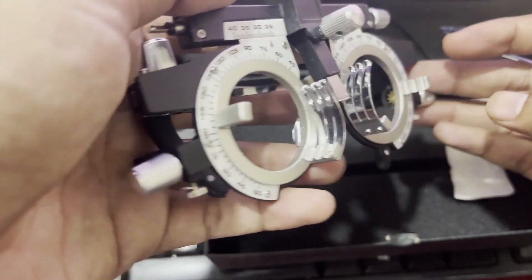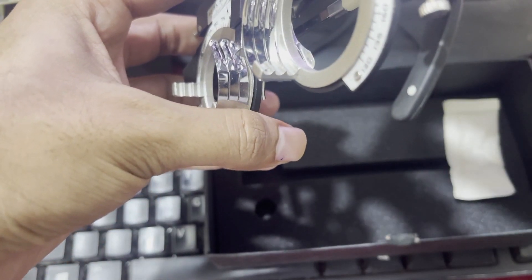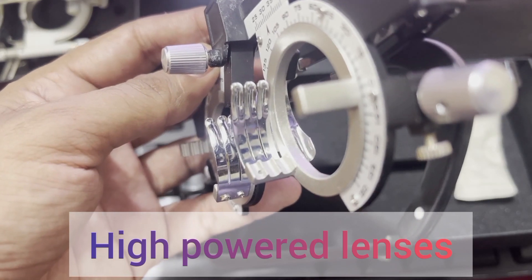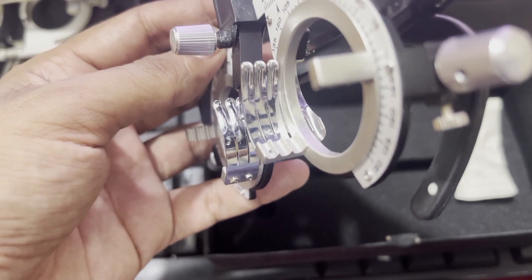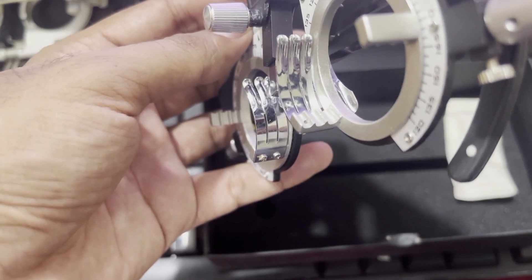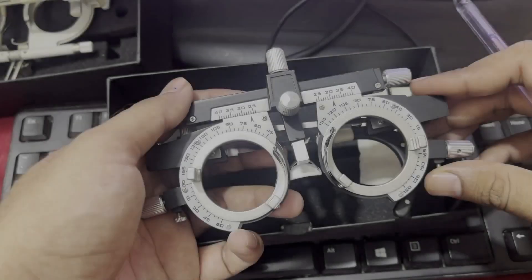Now we will discuss the placement of lenses in these compartments. The first compartment is used for the placement of high powered lenses. For example, in high hypermetropia we can prescribe more than plus five lenses, or in high myopia like pathological myopia we can prescribe high minus lenses like minus six or minus seven. Those high powered lenses are adjusted in the first compartment.